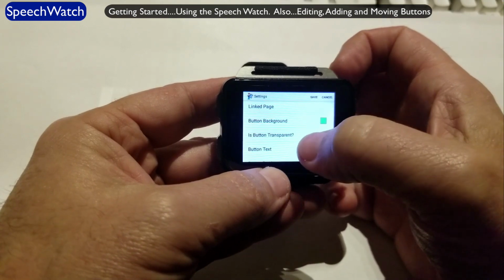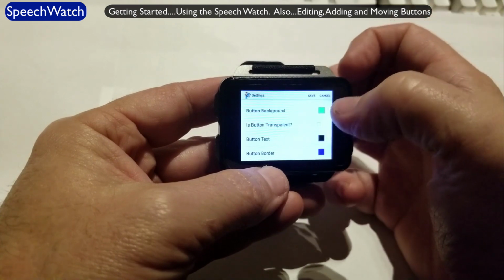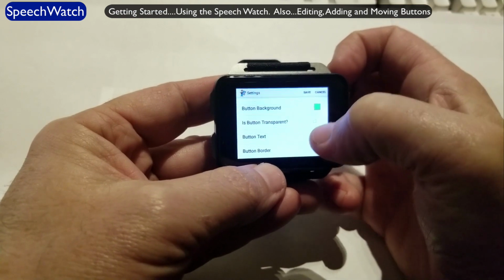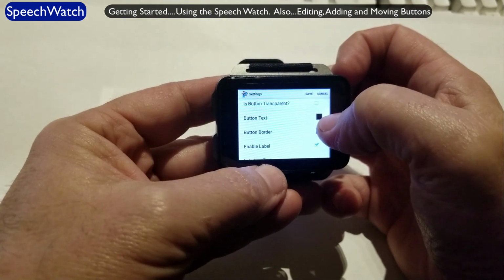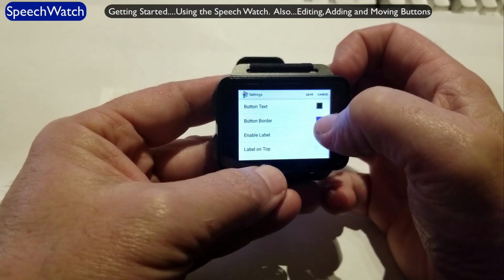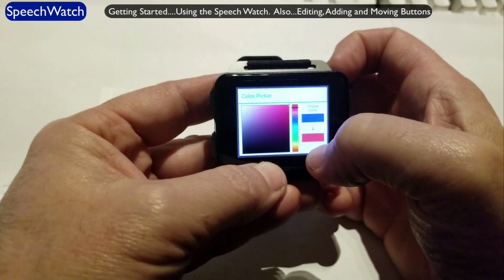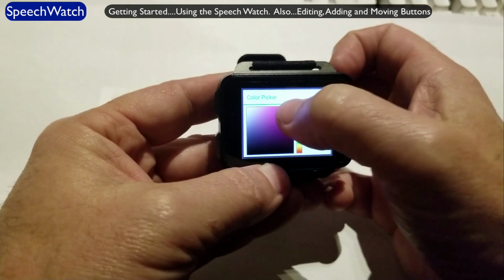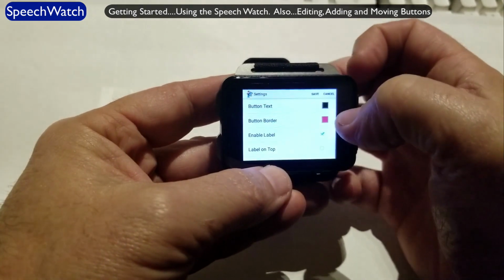There it is, button background. Buttons can be transparent. In other words, there is no background. You can just see through them. So you could put an image on the background of this page and you could see through the button. And so you can make hot spots and that sort of thing. The color of the text on the button that says right now mother is black. That's fine. The border color is blue. We can change that if we want. Again, I hit color spectrum to select a general color. Then I'll check the shade of that color. And if I like it, I touch on this square here. The button border is now selected as that color.